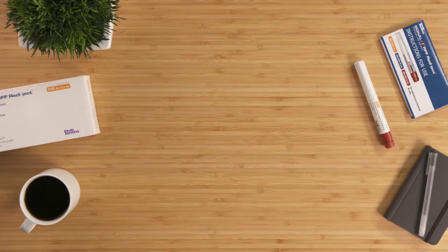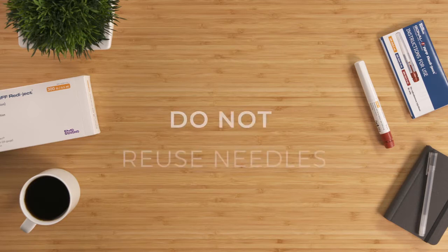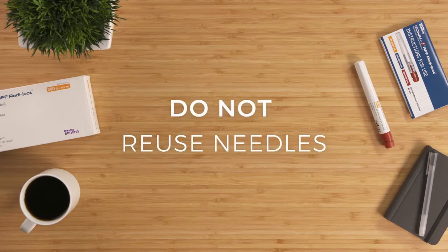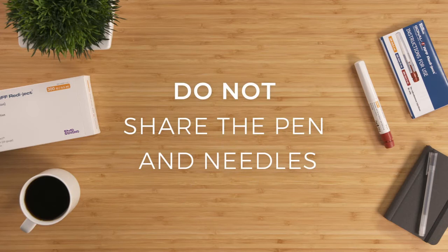Before we begin, there are a couple of warnings that my healthcare team stressed with me. Number one, do not reuse needles. And number two, do not share the pen and needles with another person, because doing so can cause an infection. These are important warnings.